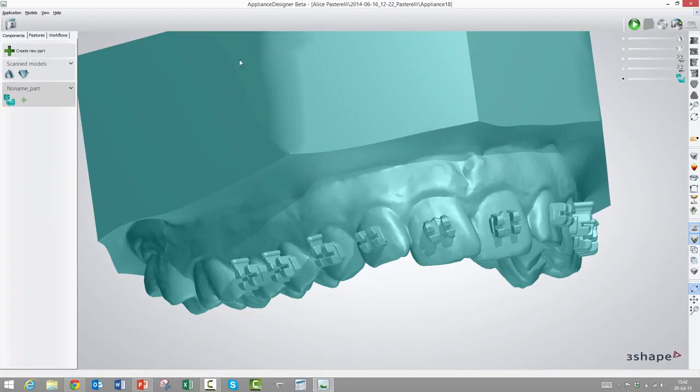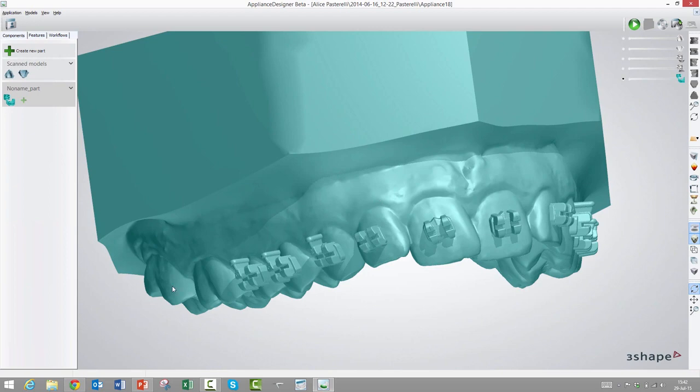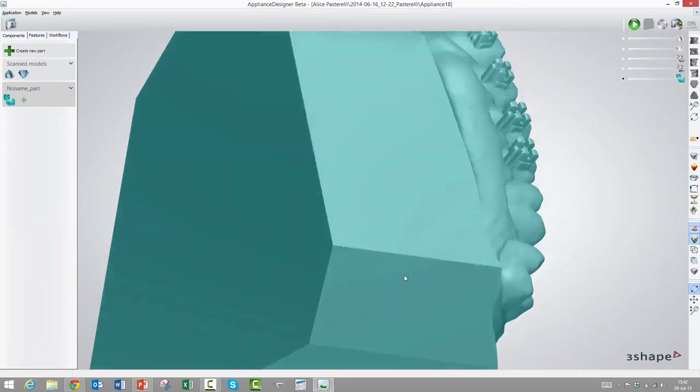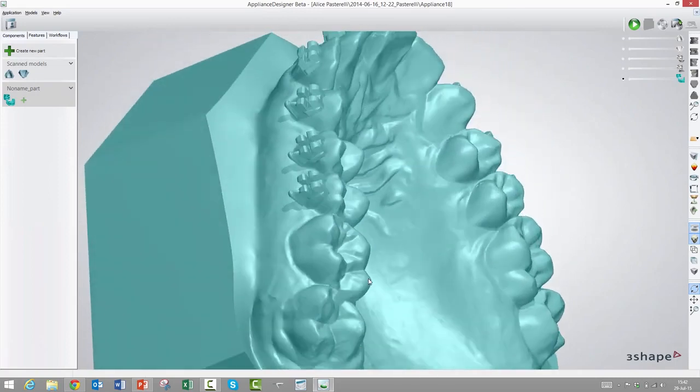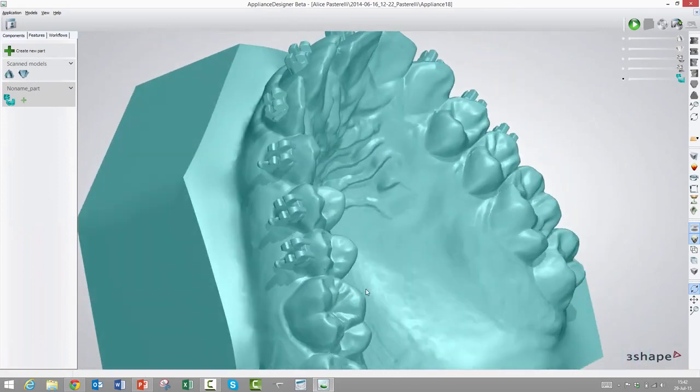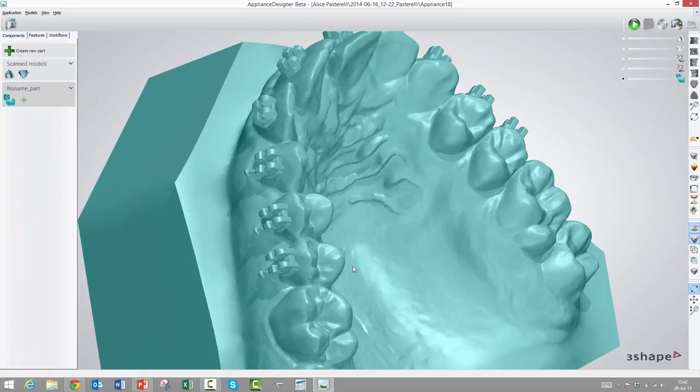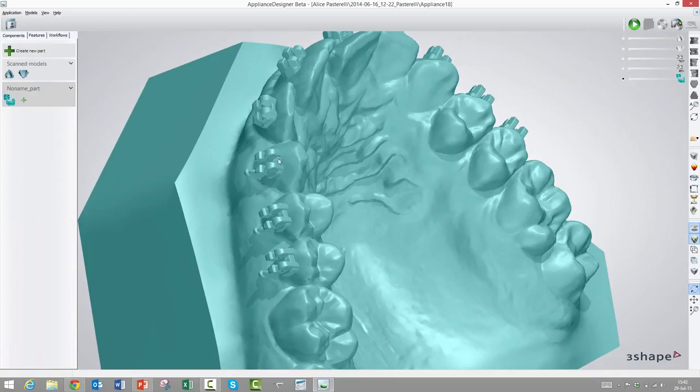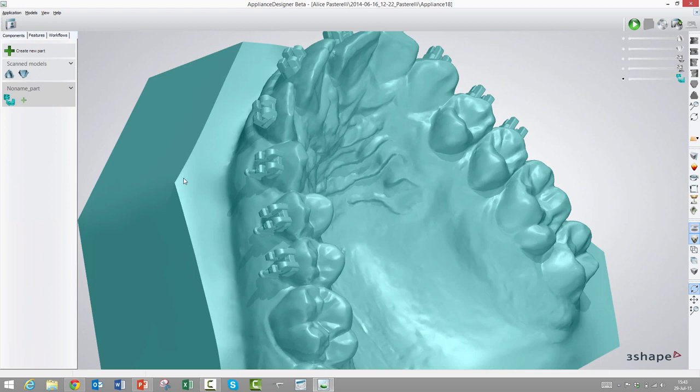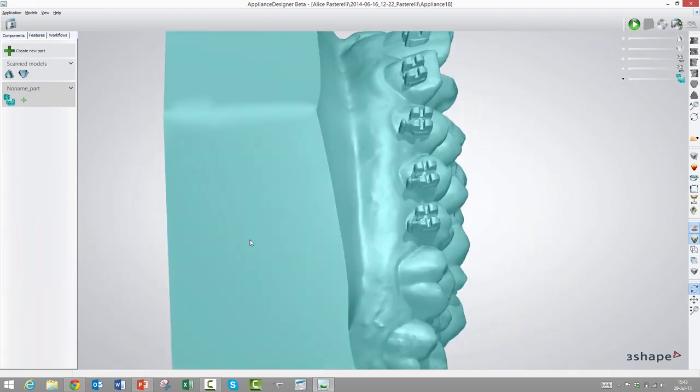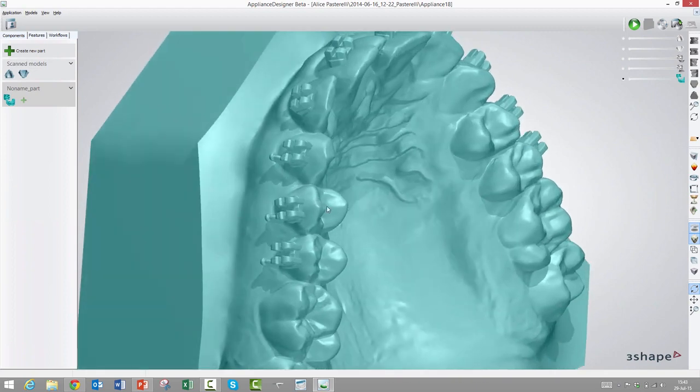The final transfer option we have is directly printed trays. It would be really cool if you didn't have to first of all print this entire model, using a lot of material and time on that, and then vacuum compress a tray on top of this and spend the time to cut it out afterwards. It'd be really cool if we could print the transfer trays directly, and we have made a design option so this is in fact possible. The only thing we need is a short-term biocompatible material to print the transfer tray in. There are materials on the way and they should be on the market within a few months. So when you hear this video, there's a good chance that the materials are already there. So contact your 3Shape reseller and have them inquire 3Shape for the latest updates. That's quite a game changer for indirect bonding.